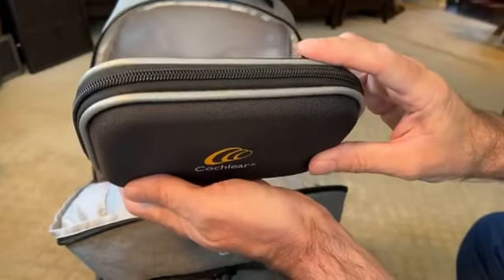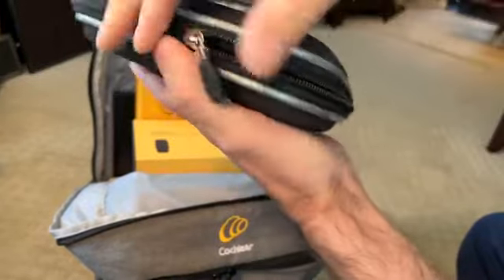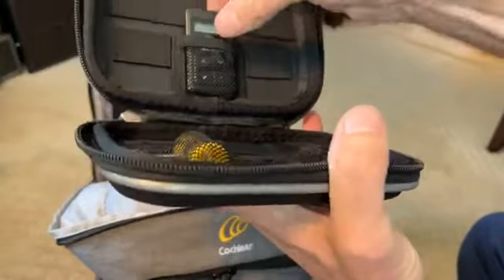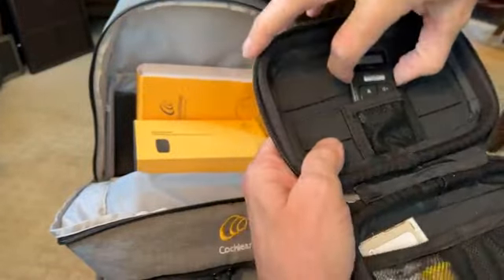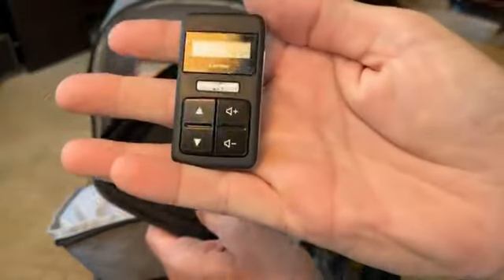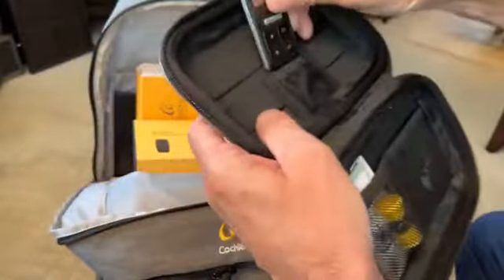First, just like any of you with hearing aids, we usually have a small case for batteries and stuff like that. Mine comes with, automatically — a remote control. So keep it in your pocket and use it. Obviously, volume and programs.